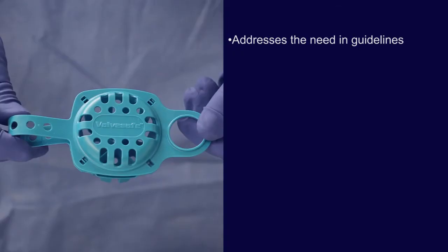In summary, ValveSafe addresses the need in both national and international guidelines of keeping the scope and its accessories together during the cleaning process.